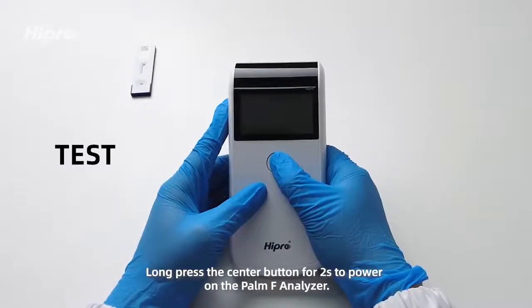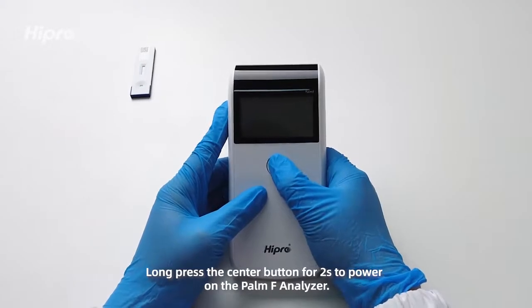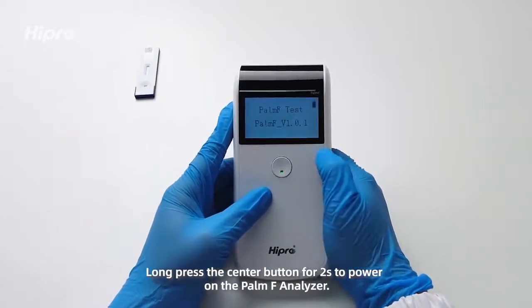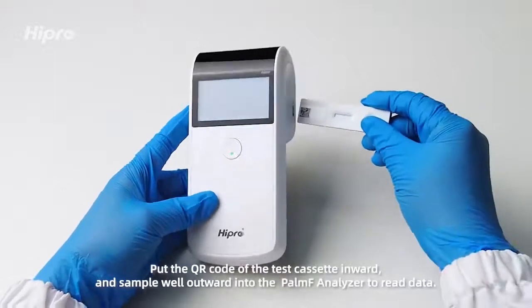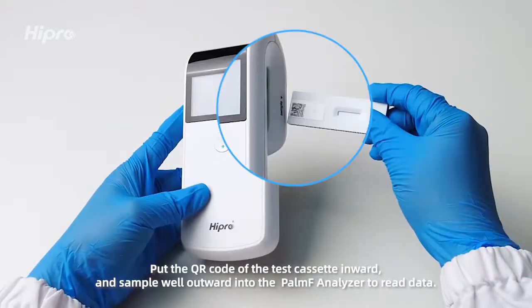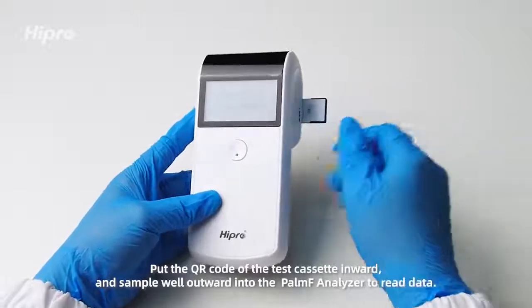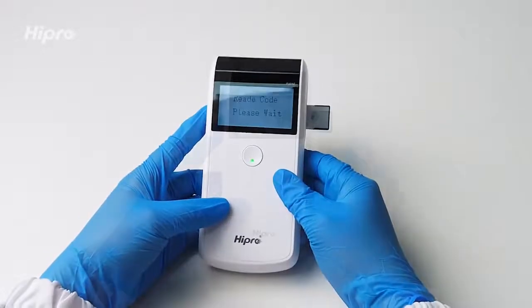Test: long press the center button for 2 seconds to power on the Palm F Analyzer. Put the QR code of the test cassette inward and sample well outward into the Palm F Analyzer to read data.